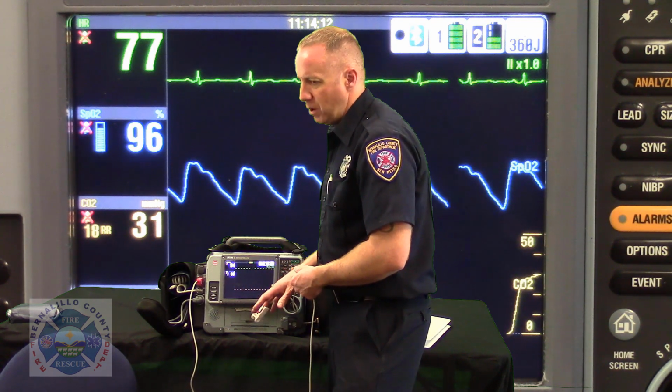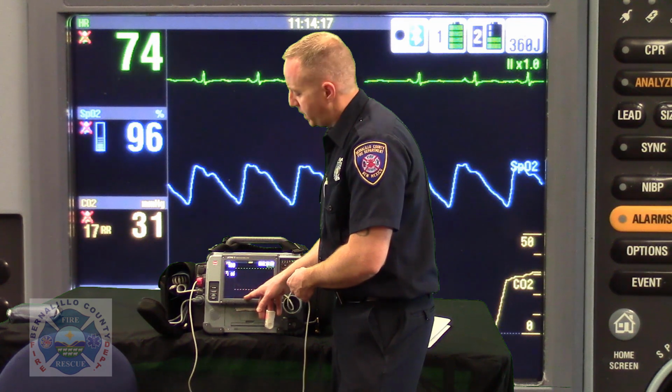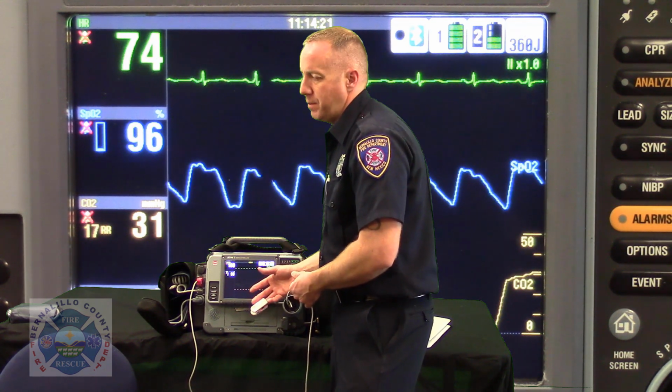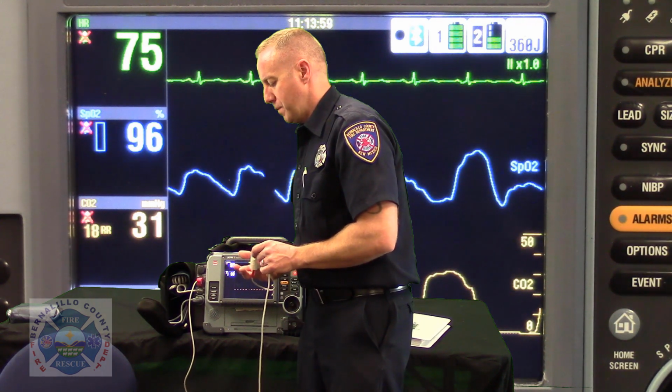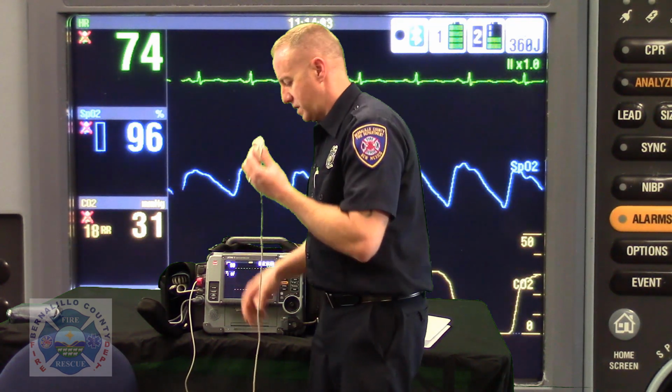Conversely, if it's below the halfway point, the monitor is going to give you an indication that says SpO2 low perfusion along the bottom, and it's going to want you to probably try to make some troubleshooting steps. Is the probe the correct size for the patient's finger? That'd be the first thing that would be wrong.